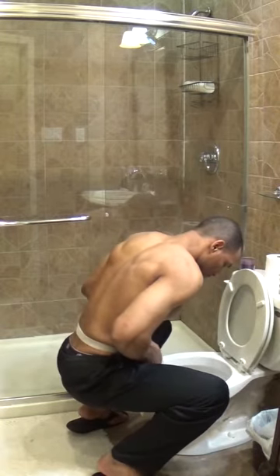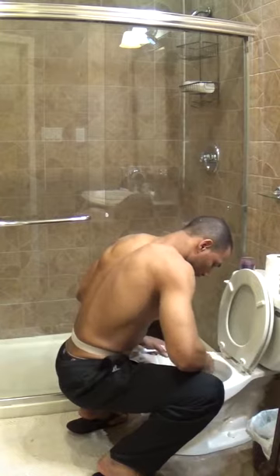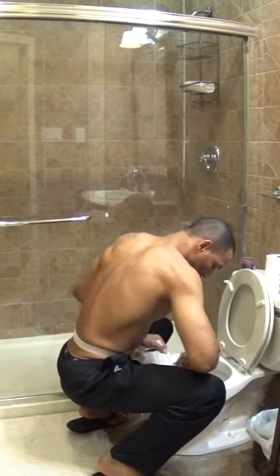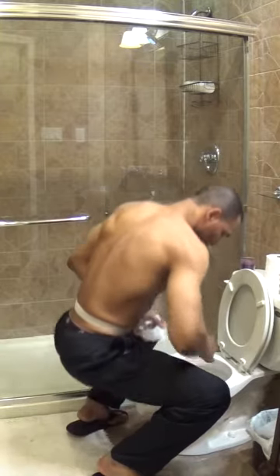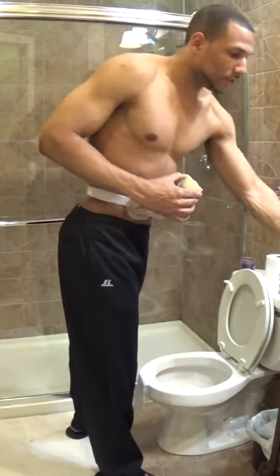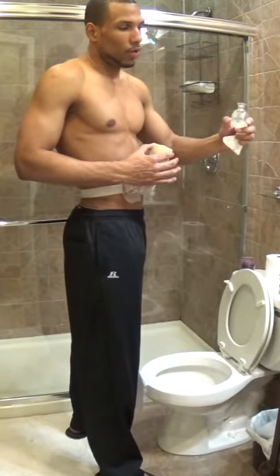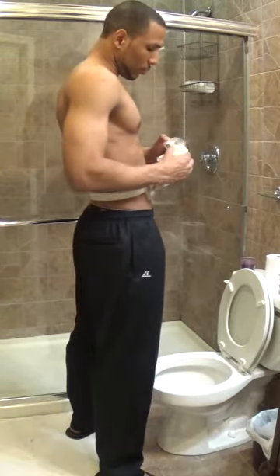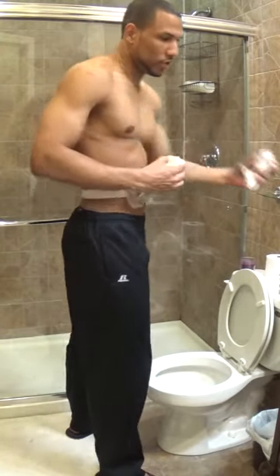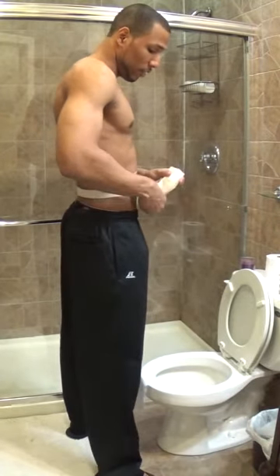And you pour it in. Now you take one of the toilet paper pieces and you're just going to wipe any excess off the top of your empty ostomy bag — just wipe off the excess liquid. You're going to get some water. If you're in a public restroom, you can have a bottle of water or water in a cup. You pour it in — this you're going to use just to wash out your ostomy bag, to get it all cleared out and make it feel better.